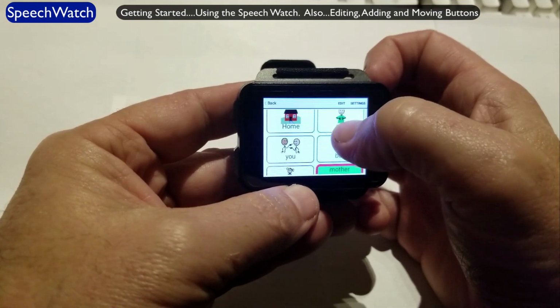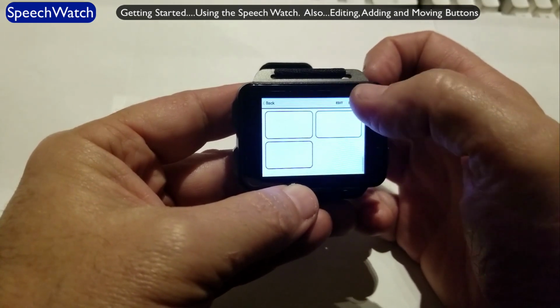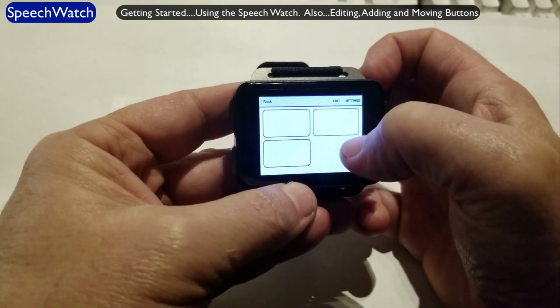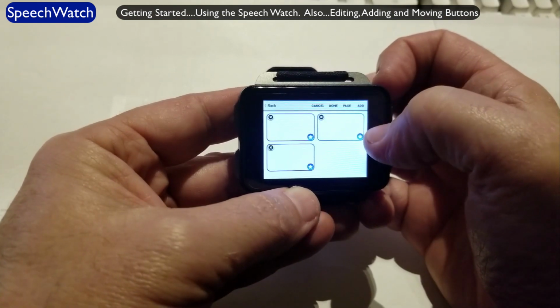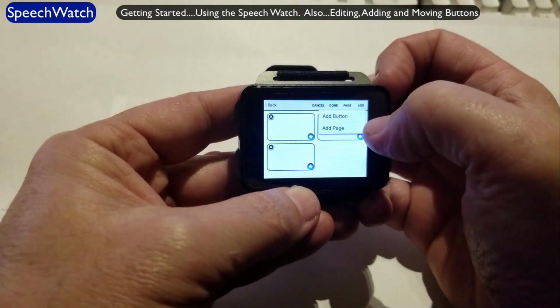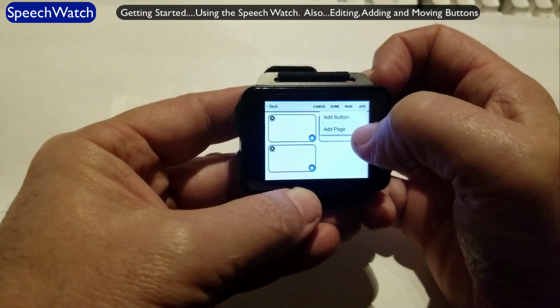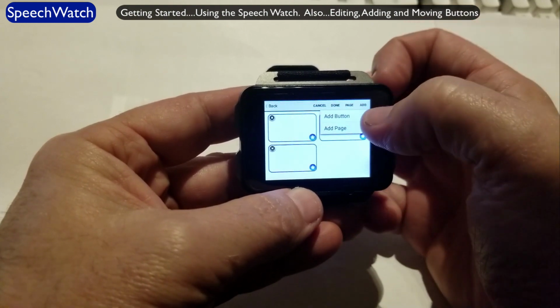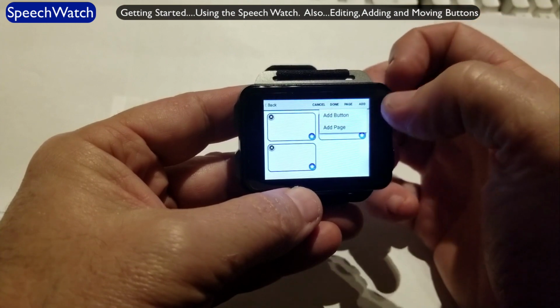So let's suppose we're on this page of people and let's add a new button. So we have these buttons, although they're blank, they're not new buttons. But let me show you how you add a new button. Hit edit up here. Then see the top right hand corner, it says add. Choose add. Now there's two choices, add button or add page. Add button is for adding a button that says something. It's just a button that you touch it, it's going to say something that you've put in there.